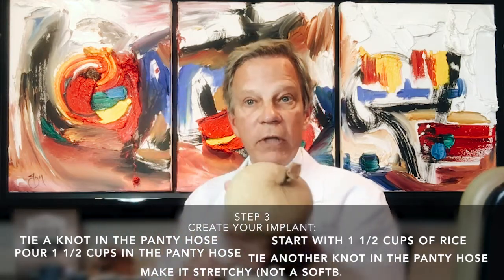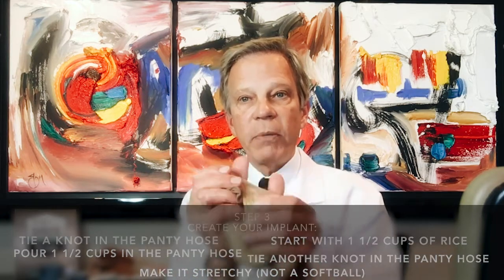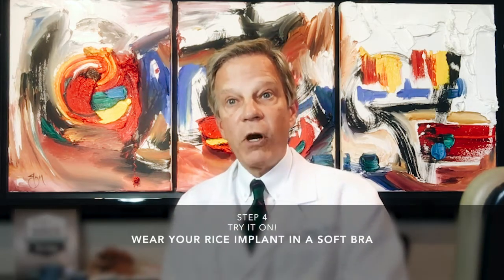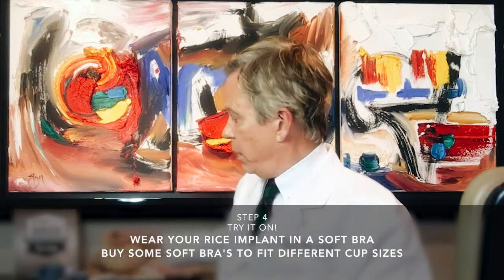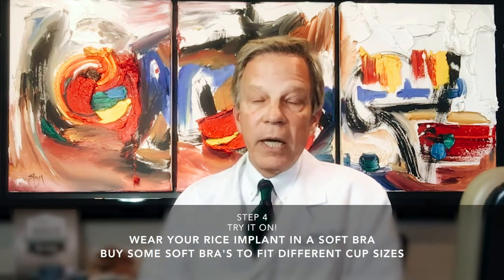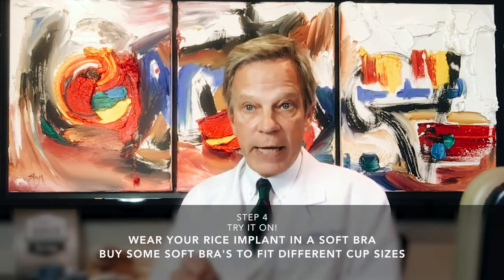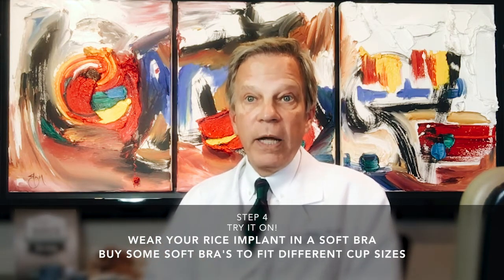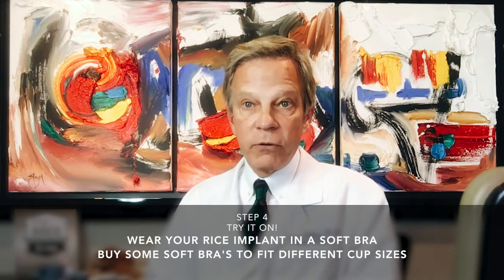You do not want this to look like a softball — you want it to be able to mold and shape inside a soft bra. A sports bra is too restrictive; you need a bra that fits almost any cup size — A, B, C, D, E, F, G — one that fits your chest. If you need to buy one, you should not have to spend more than $10 to $12.